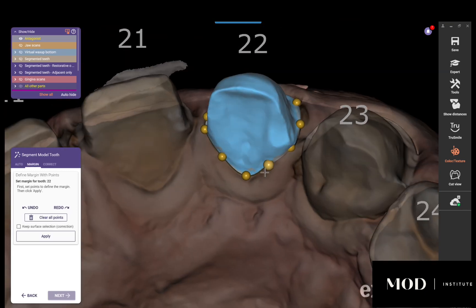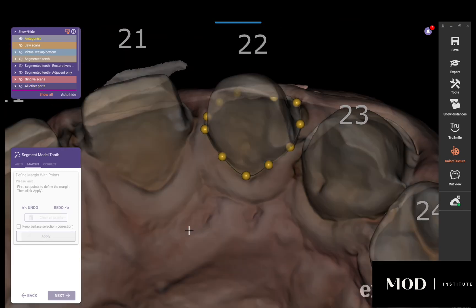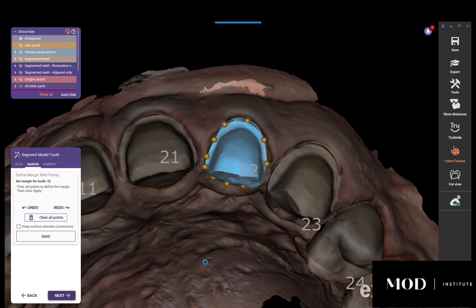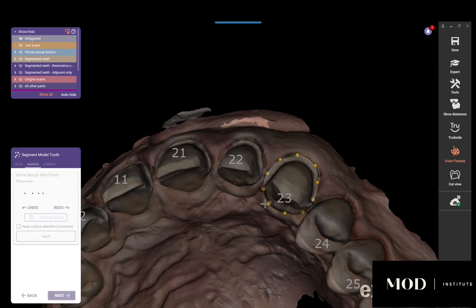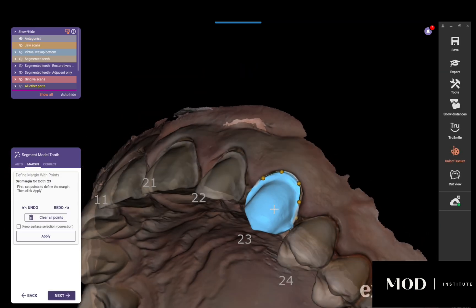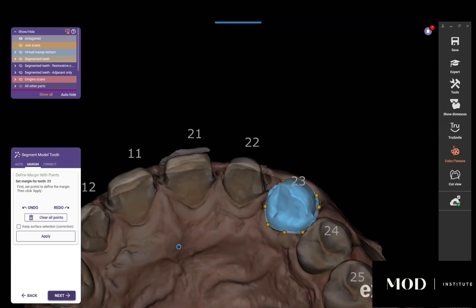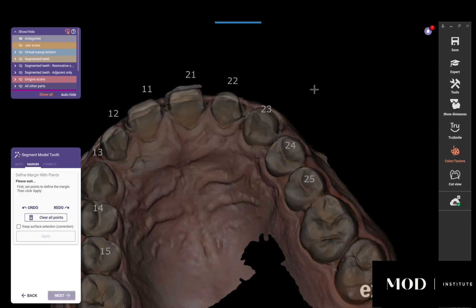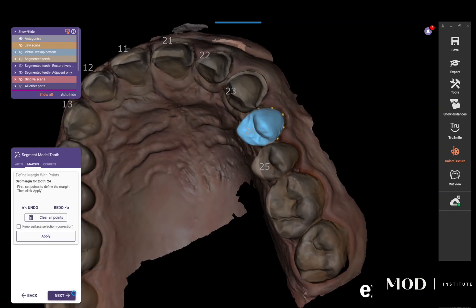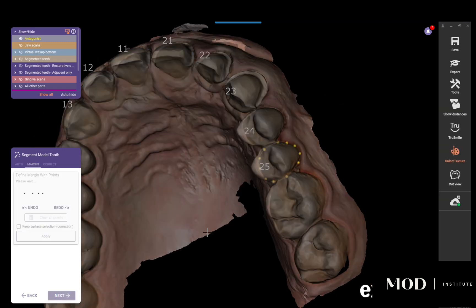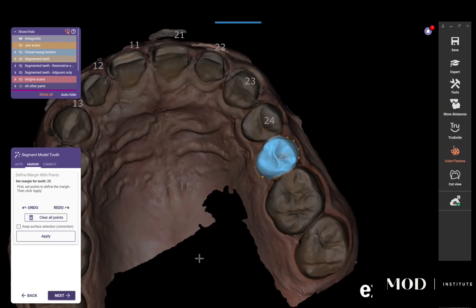I'll go ahead and hit next. The remaining teeth — even the no-prep teeth — the segmentation nailed it perfectly. It's really cool to see this feature available.